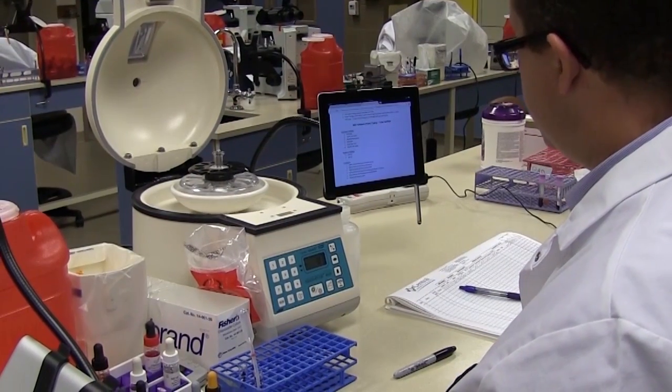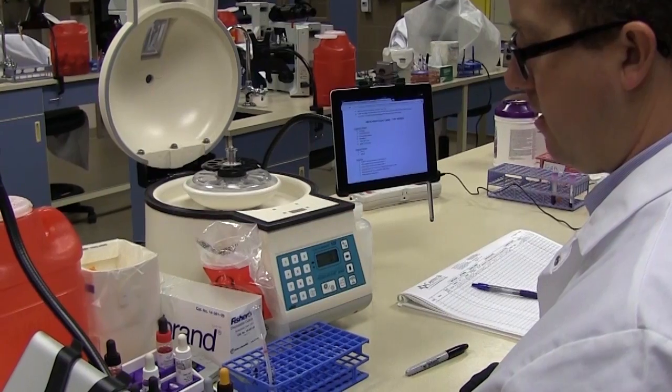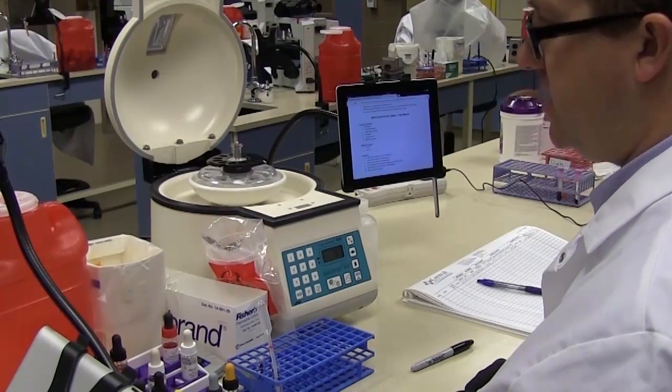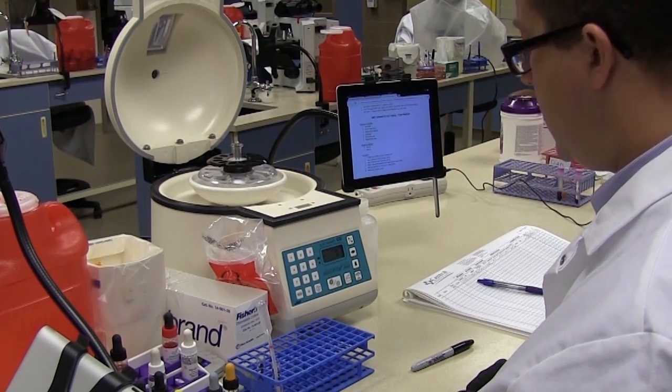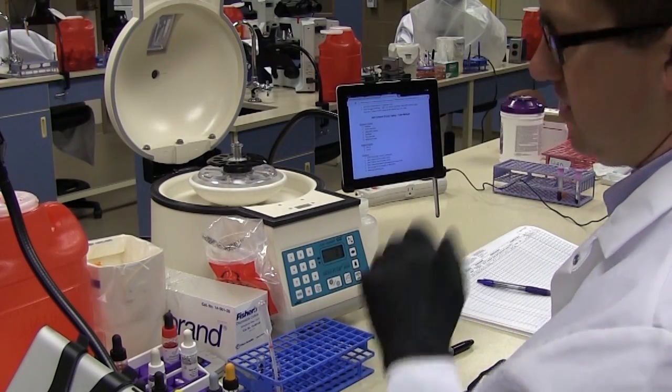In this video we are going to do ABO forward and reverse typing and RH typing with the weak D or DU. The procedure can be found on canvas and it's called ABORH.